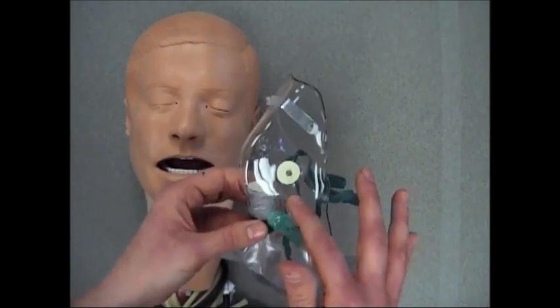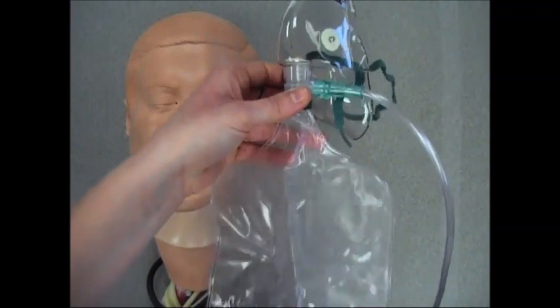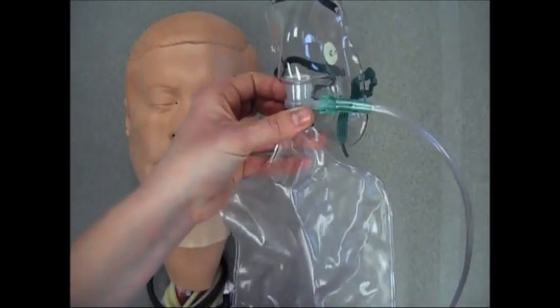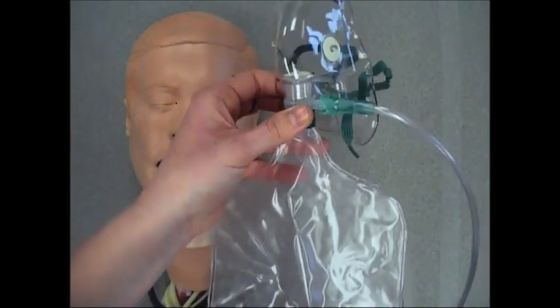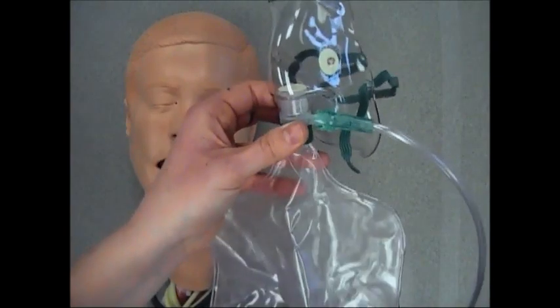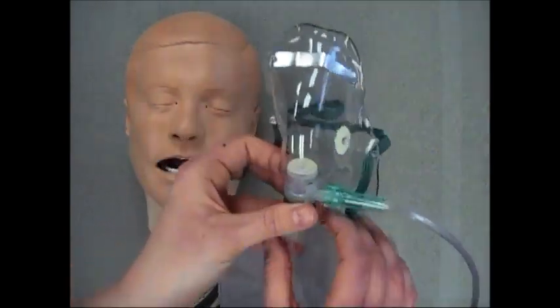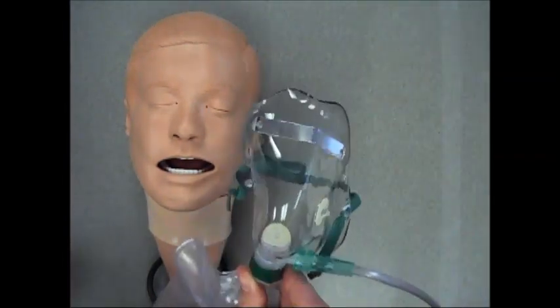The non-rebreather mask is attached to a reservoir bag full of pure oxygen. This is the bag that the patient will breathe from. This is the only source of oxygen that the patient will get. The non-rebreather mask provides oxygen at a high concentration of 80 to 90 percent.